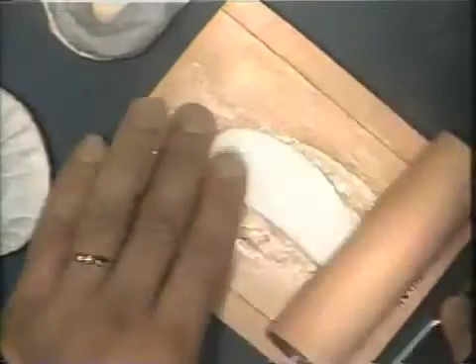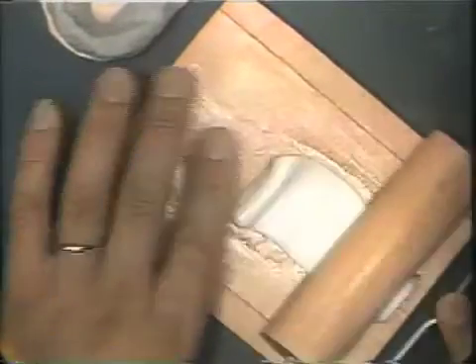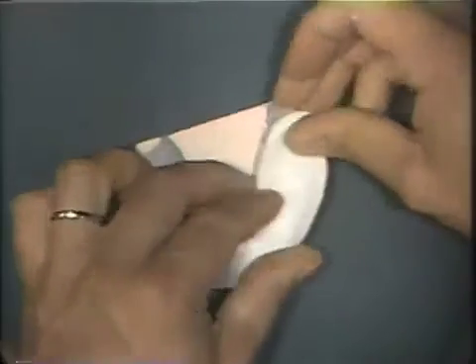The doughy former tray material is fashioned into a cigar shape and placed on a lubricated tray roller. The material is rolled out. It is important that your fingers and the tray roller be lubricated with Vaseline to keep it from sticking.